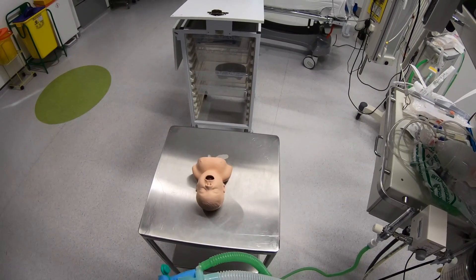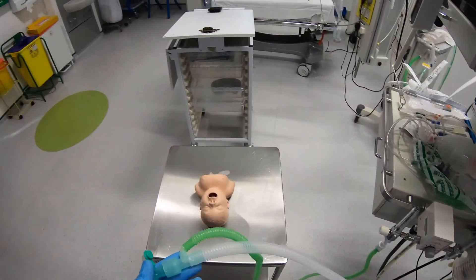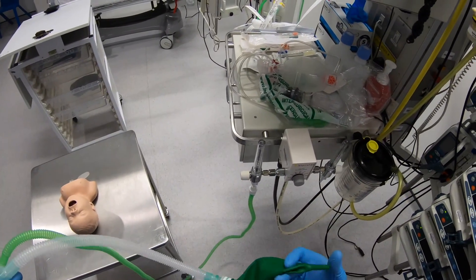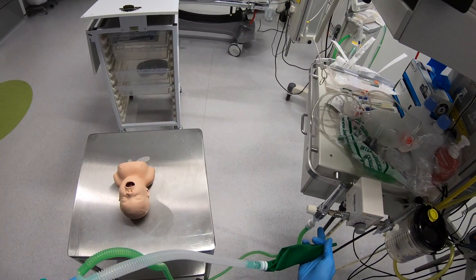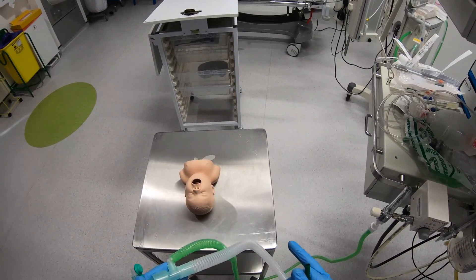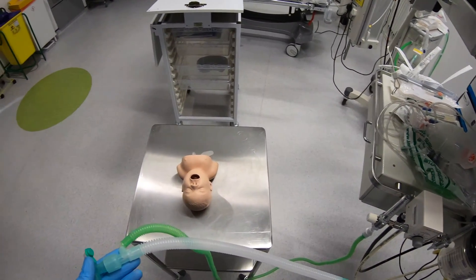After the patient takes a breath they'll expire it out through here. At the end of expiration the patient should have a pause in their breathing, but your oxygen supply continues to flow through and flushes the expired gas out through the hole at the end of the bag. So what's important is that the flow of gas is high enough that it meets the patient's demand on inspiration so they don't entrain expired gas, and that it's high enough to flush expired gas out through the bag before the patient takes another breath in.